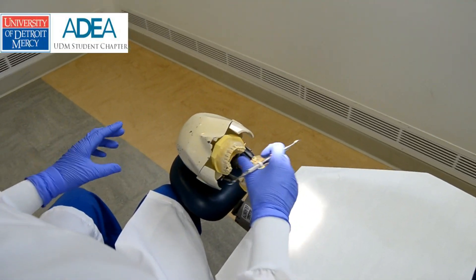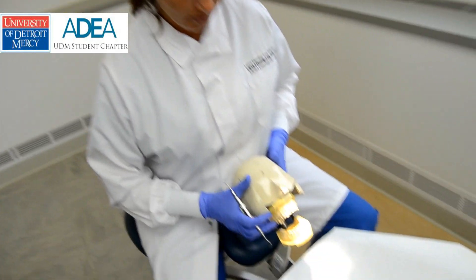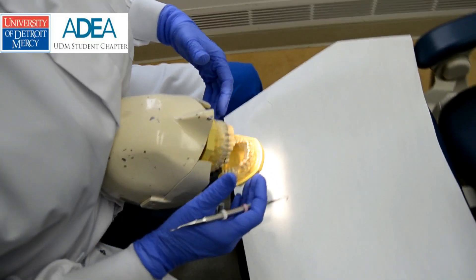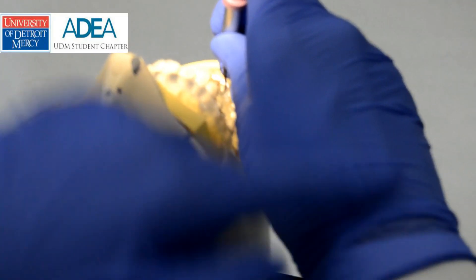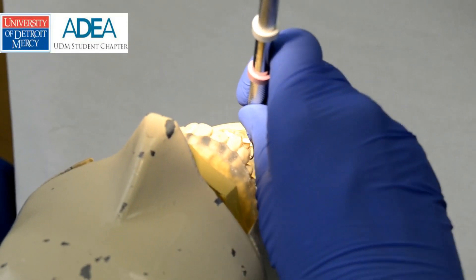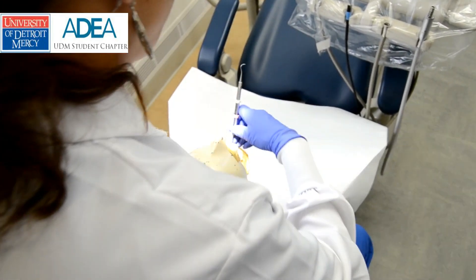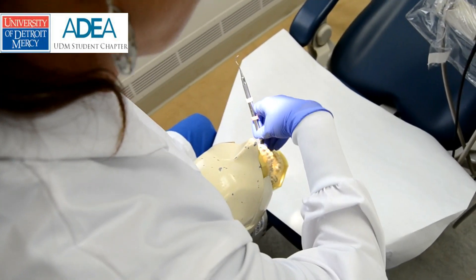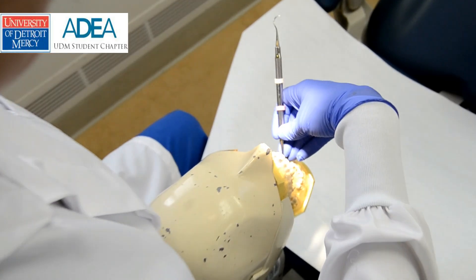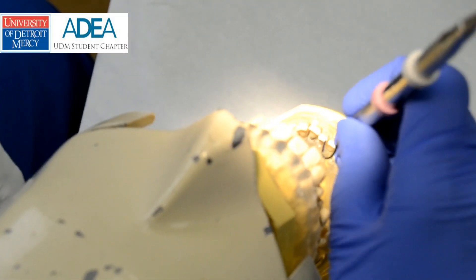For chair position, if I want to sit and do the maxillary or mandibular, I can sit straight up bending forward from the pelvis and instrument from there. My neutral wrist helps me tell if I'm sitting in the correct position. A lot of students try to sit at 12 o'clock to do all their instrumenting for mandibular lingual and find they can't see, or they compensate by really bending the wrist.